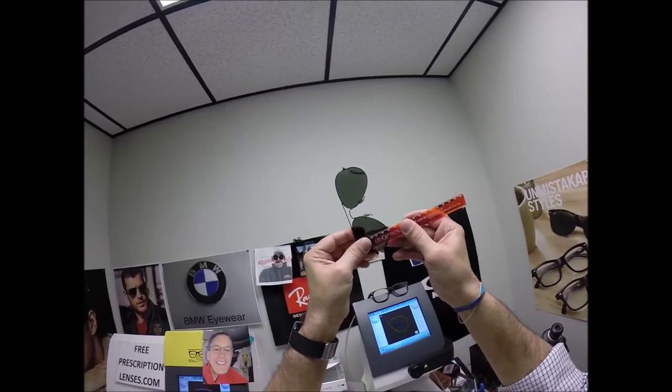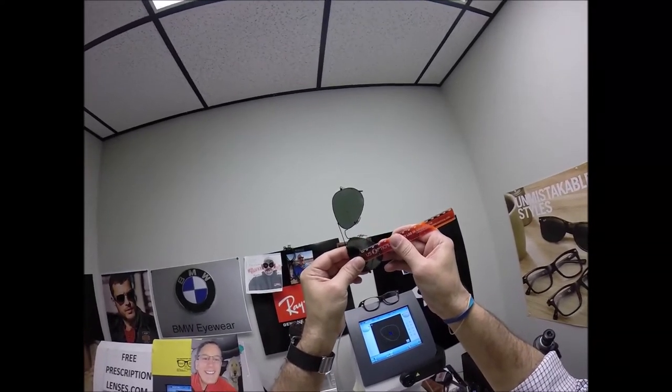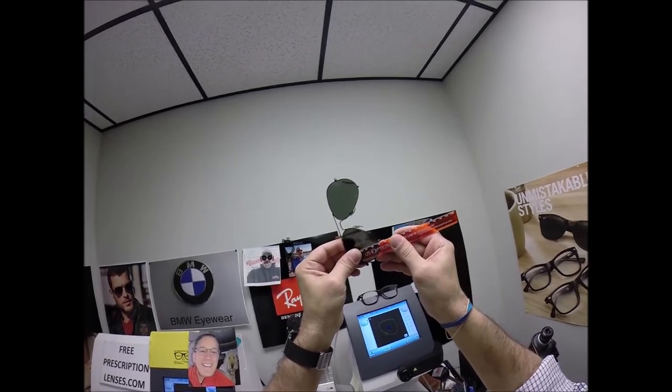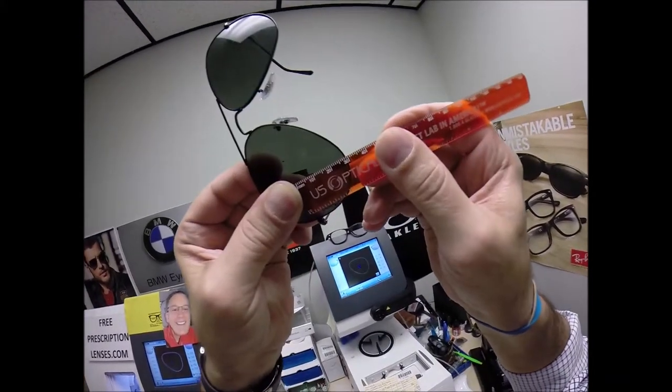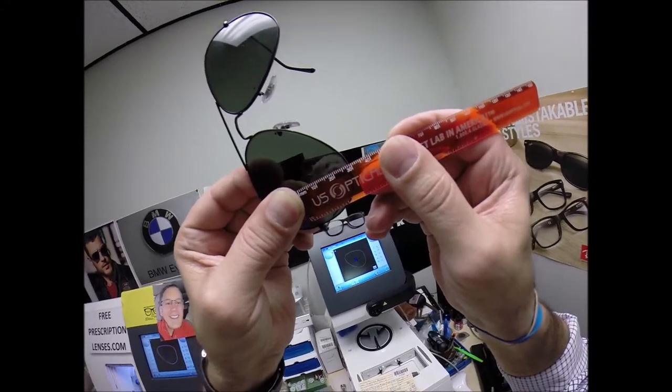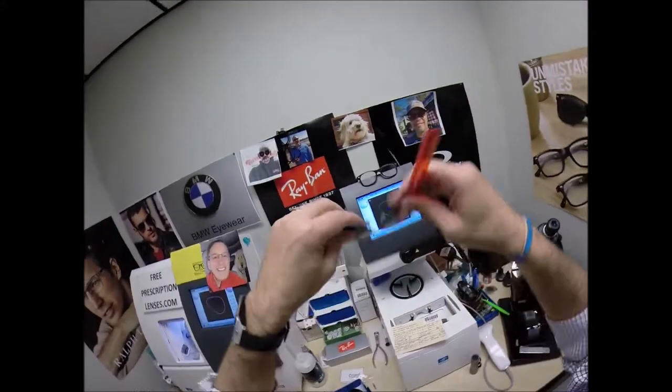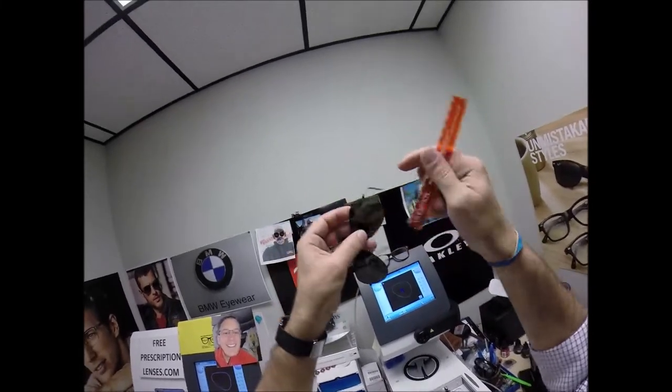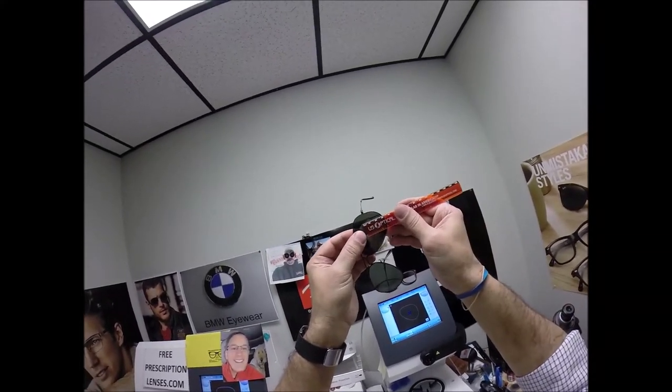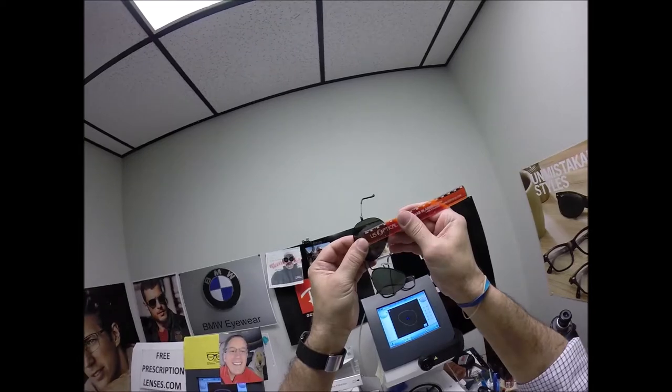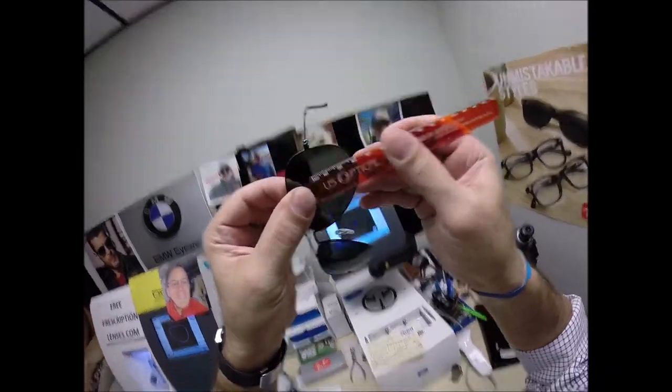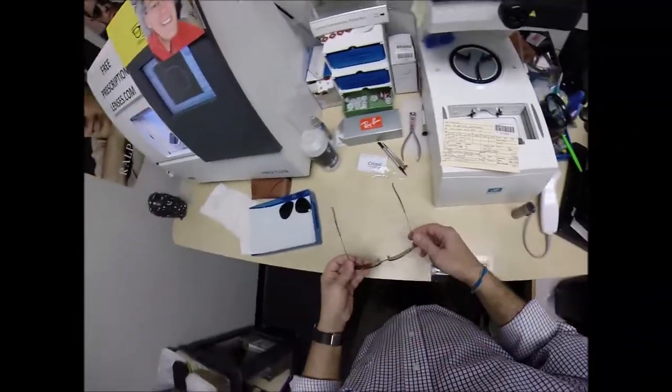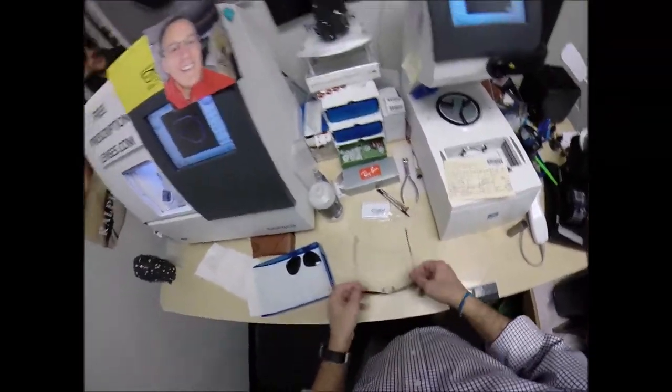The 29, don't forget I gave you an extra millimeter, and we're going to start out here, we're going to make it parallel to that dot, not right here because that measures 23 and a half, we're going to come down here to the deepest point of the frame. And then when you look it's just inside of the 30mm mark. We're going to do the same thing on this side but we're not going to measure that way, let's turn this around this way. 29, man the kit is good. That better be, I went to school for a day to learn how to do this.